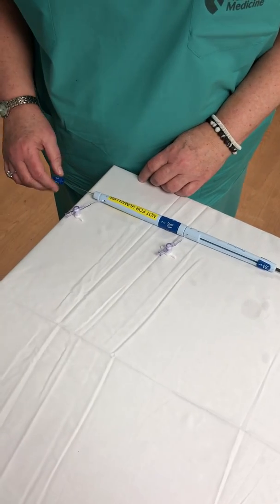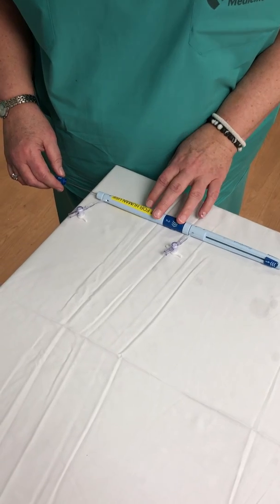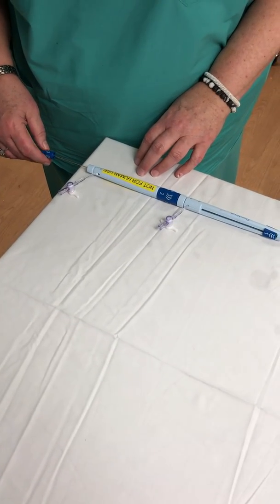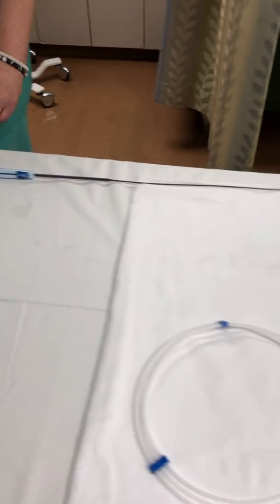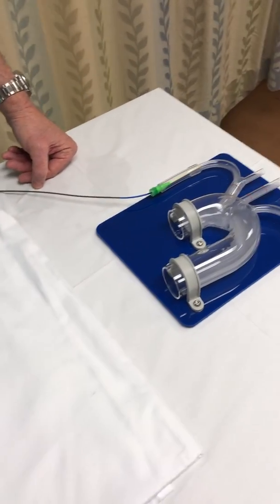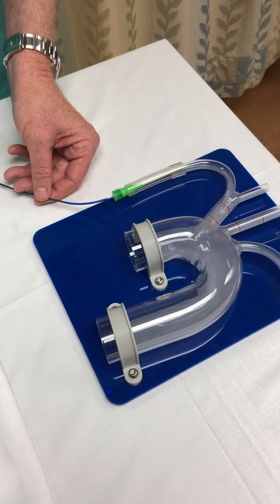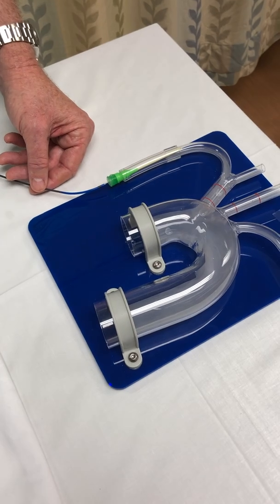Hi, we're here today to give you a quick demo on how to deploy and retrieve the Sentinel cerebral embolic protection system. In order to do this, we're going to need a wire — either 180 or 300 length preferred — Boston Scientific PT Choice extra support, a Boston Mailman, a Grand Slam 300, and an ACT of 250 or higher.